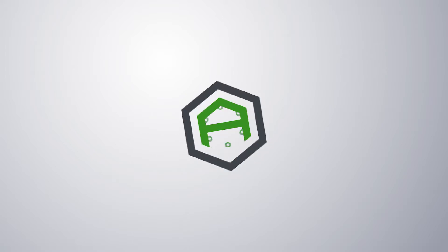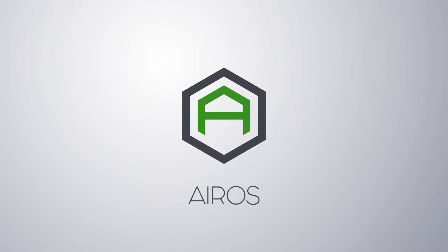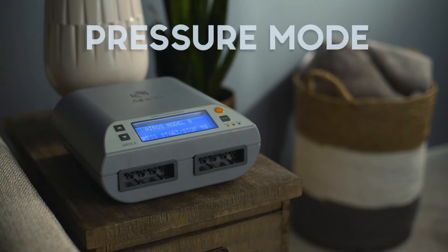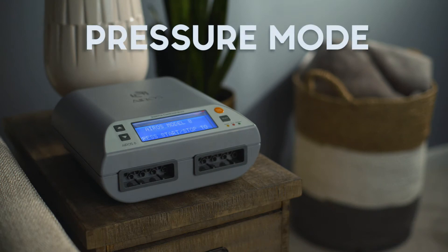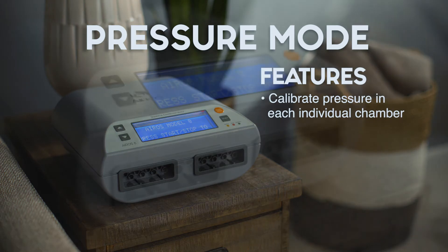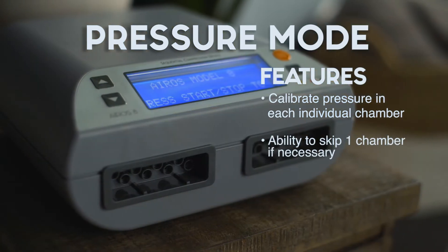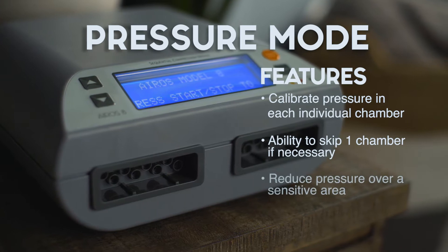The Aeros8 sequential compression device can be operated in two primary therapy modes: gradient mode or pressure mode. In pressure mode, the user can change the pressure in each individual chamber of the garment, or skip a chamber to reduce pressure over an ulcer or a sensitive area.